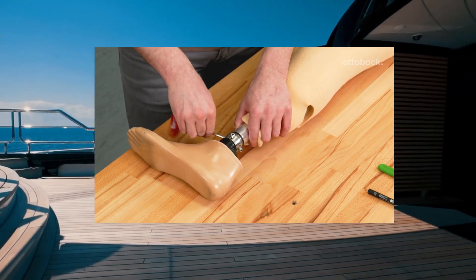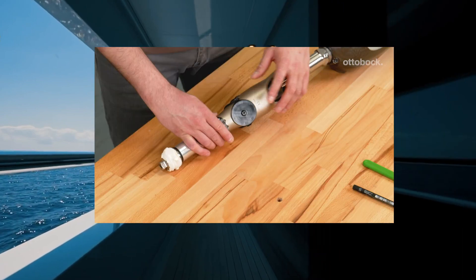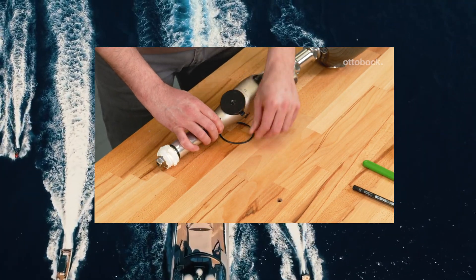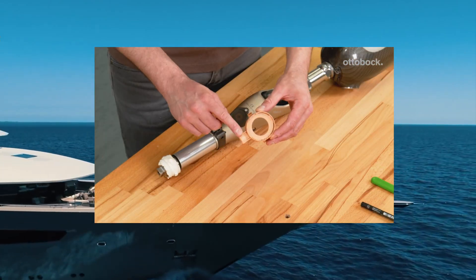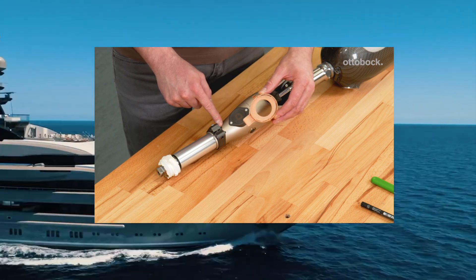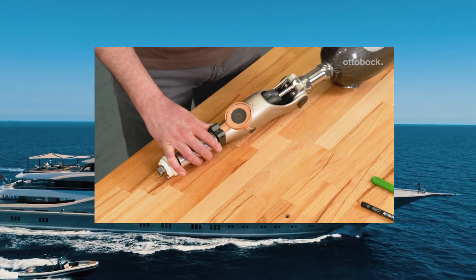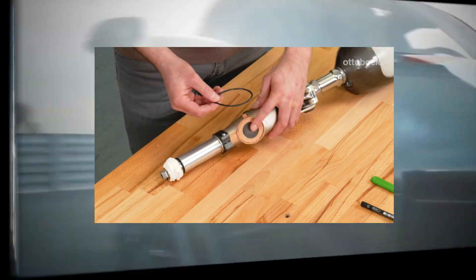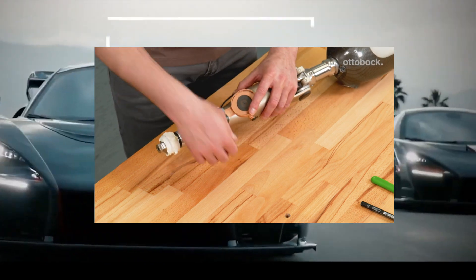Remove the foam cover from the prosthesis again and detach the centering plate from the Kenevo. When installing the charging shaft receiver, please ensure the tongue-shaped extension is positioned distally. This snaps easily into the recess above the tube clamp. The O-ring can now be used to attach the charging shaft receiver.